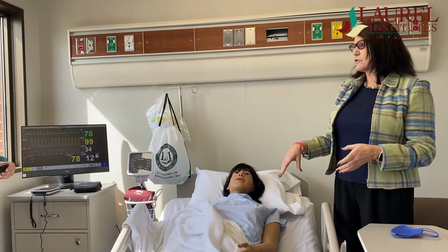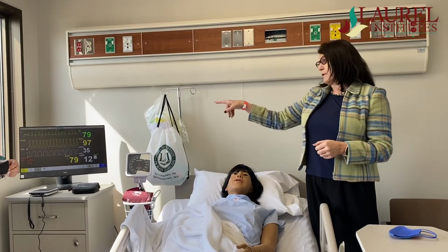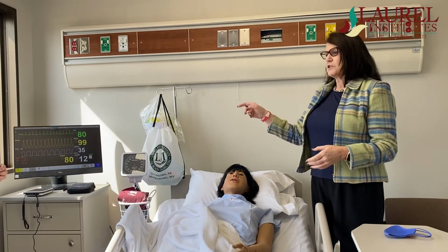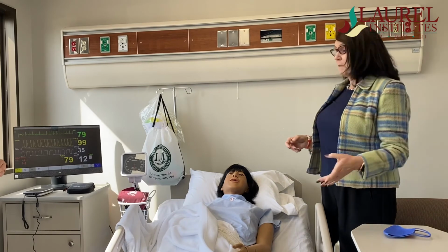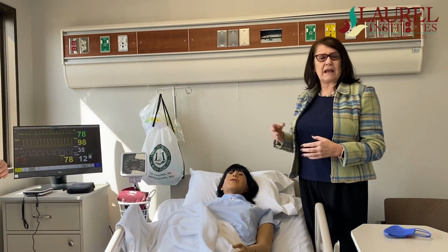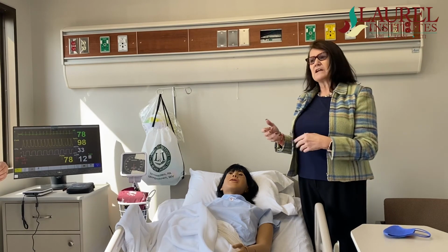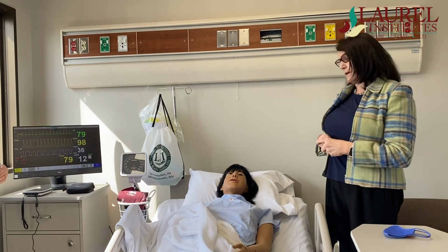While those medications are going in, Mrs. DeFazio can actually change the parameters, and the monitor will change according to whatever the students are giving. Students give the medicine that makes the heart rate go up, she can push a button and all of a sudden the patient starts reacting to the med. Student may not know what's going on with their patient and realize that it was a medication that they gave that can change the parameters. They can give her breathing treatment and then her respiratory rate gets better. We can change the things as they're doing it so that it is as close to real life as it can possibly be.